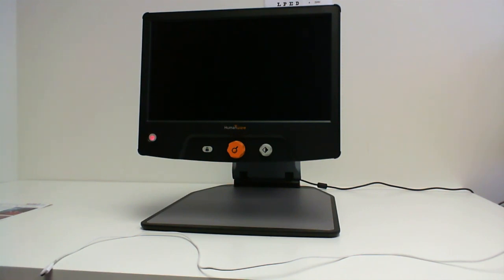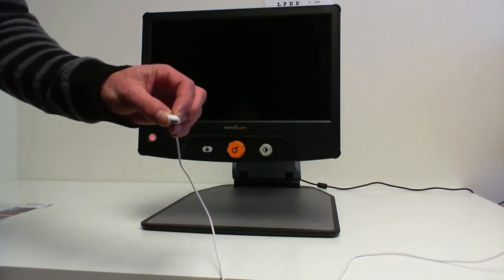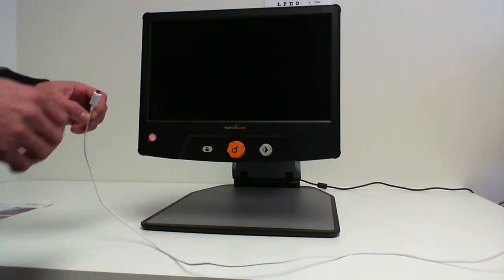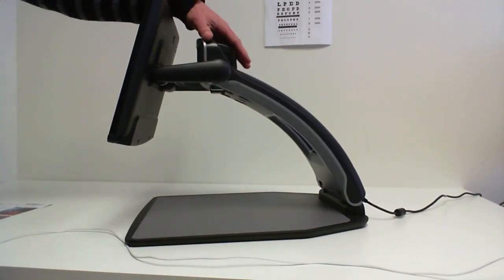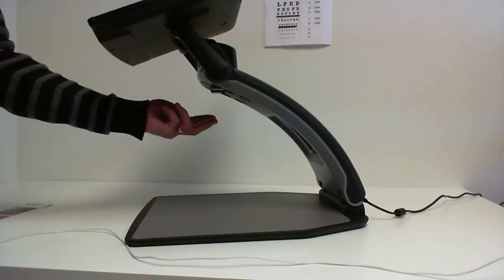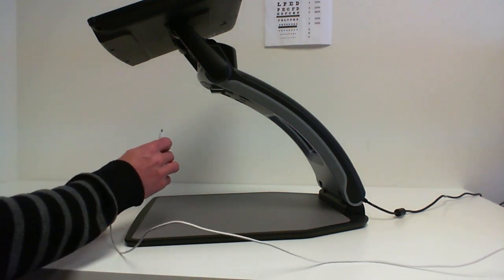You will need a cable, a USB cable, to connect to a PC. And on the other end of the USB cable is a micro USB connector so that this end will connect to the Reveal. On the Reveal, the USB port is situated under the bridge of the device. The bridge of the device is where the camera sits. And under that bridge, there are the LEDs. And underneath the LEDs is the port, the micro USB port that you will connect the cable.